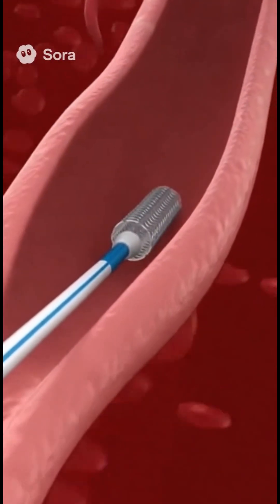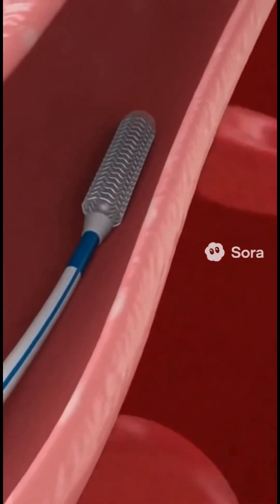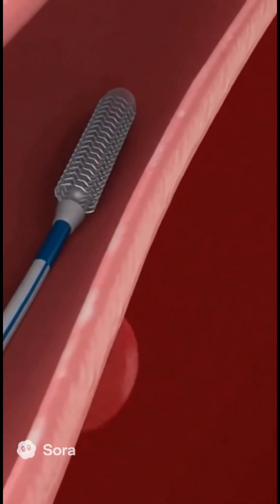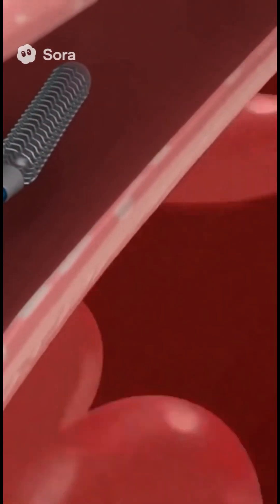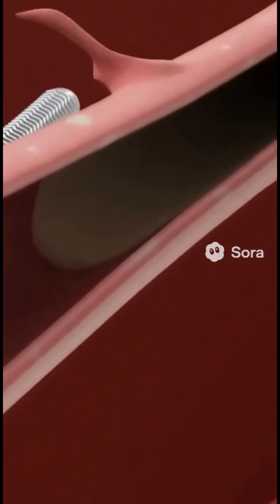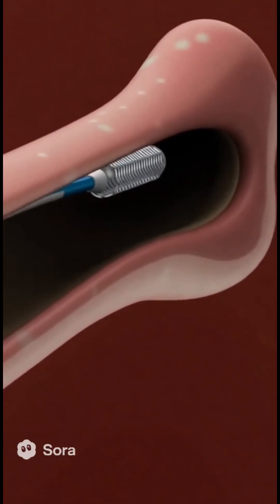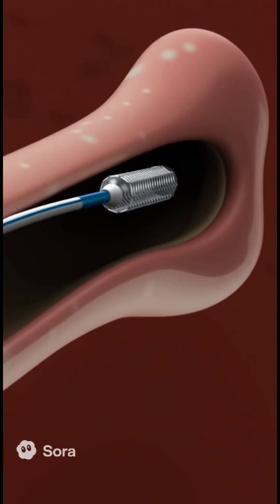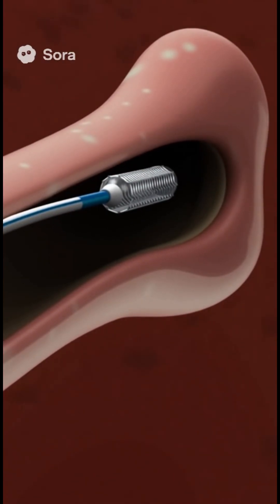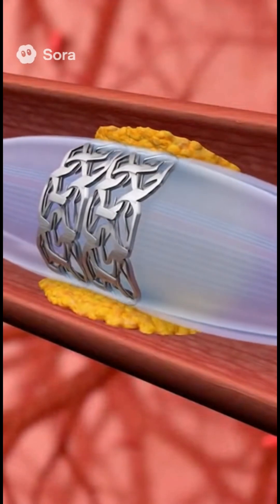To open the blockage, doctors perform a procedure called angioplasty. A thin tube, or catheter, is inserted through the wrist or groin and guided to the blocked artery. At its tip is a small balloon with a folded metallic stent.